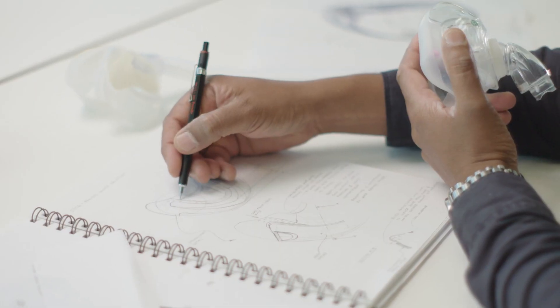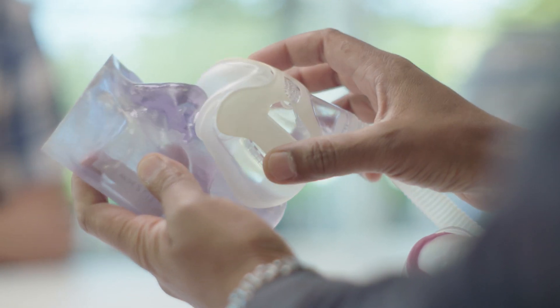We spent a lot of time with patients really up close, seeing how the geometry fitted around the nose. We looked at a lot of different ethnicities as well to come up with our three sizes that cover a large percentage of the population.